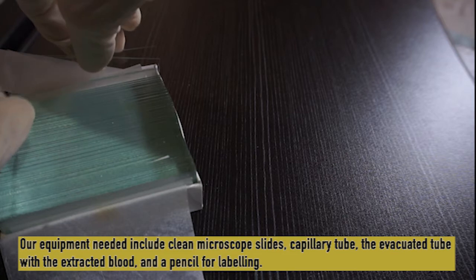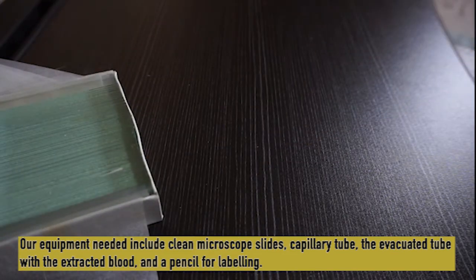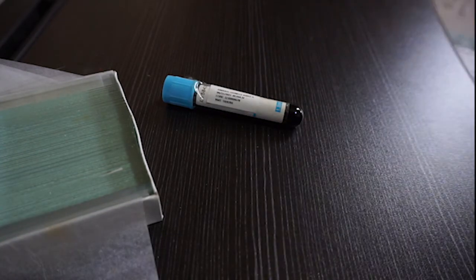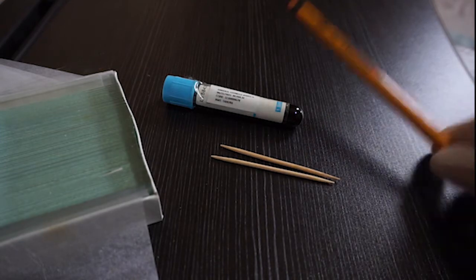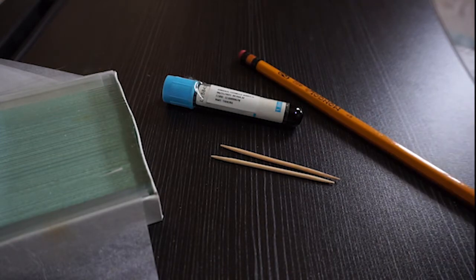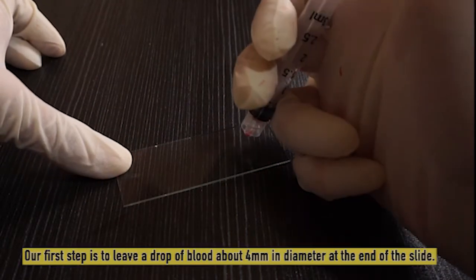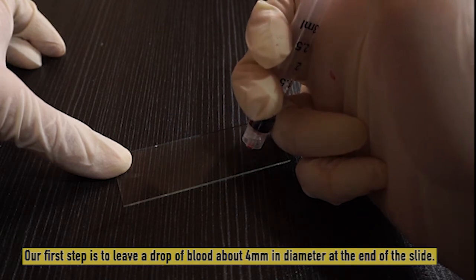Our equipment needed includes clean microscope slides, a capillary tube, the evacuated tube with the extracted blood, and a pencil for labeling. Our first step is to leave a drop of blood about 4 mm in diameter on the slide.